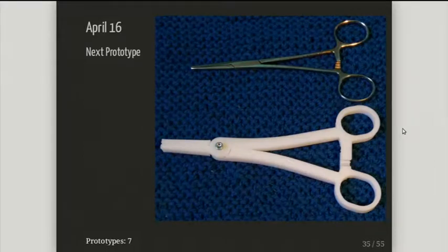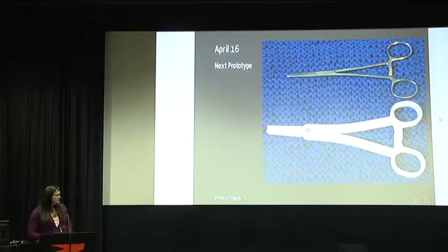So I had a working hinge, a somewhat working tool head, a working arm shape, and — it locked, it worked. But I did the plastic bag thing again to test it. It was much better than before, but I managed to get the same grip with one tooth of the actual metal tool compared to pulling it all the way down to three locking pins on the plastic tool — so it was still inferior.